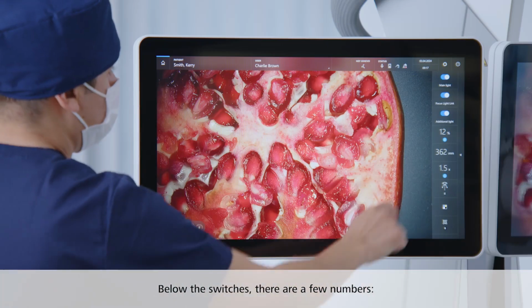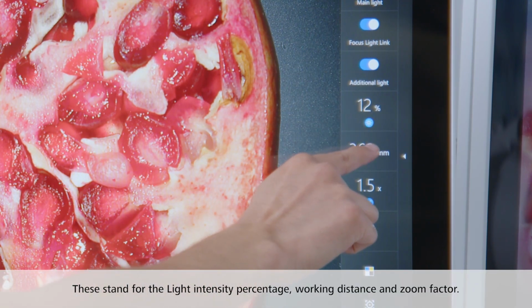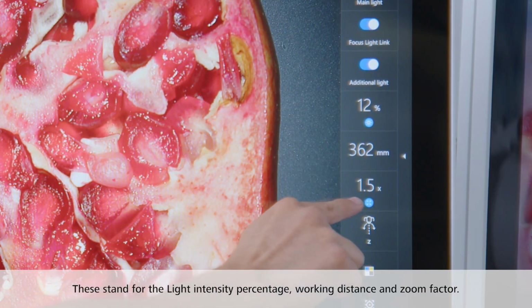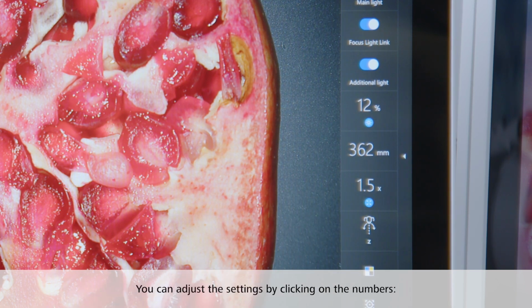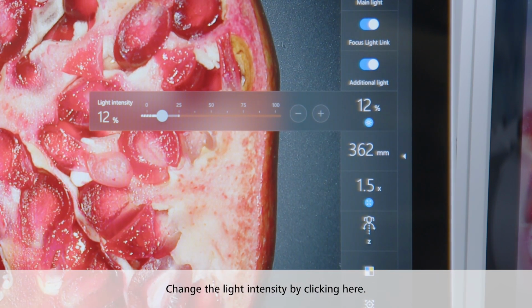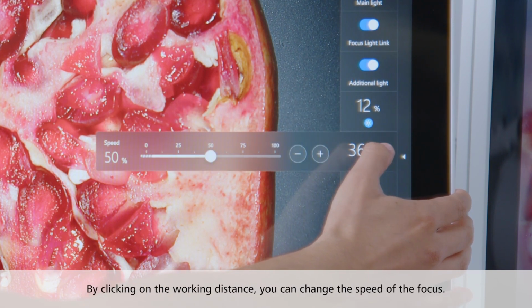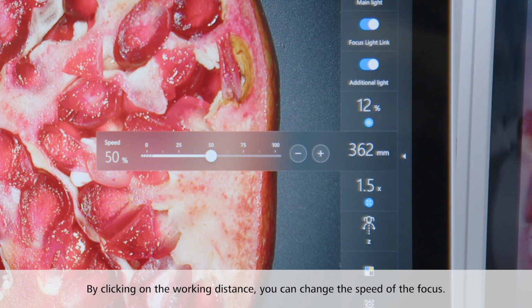Below the switches there are a few numbers. These stand for the light intensity percentage, working distance, and zoom factor. You can adjust the settings by clicking on the numbers. Change the light intensity by clicking here. By clicking on the working distance, you can change the speed of the focus.